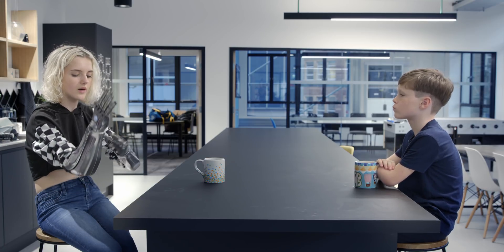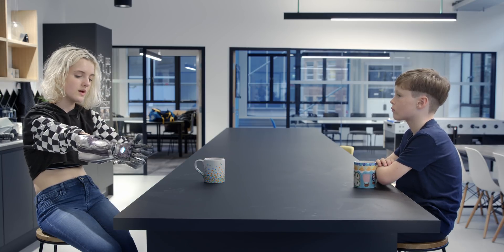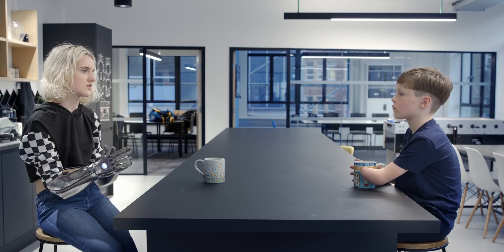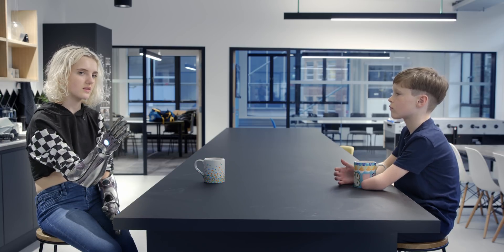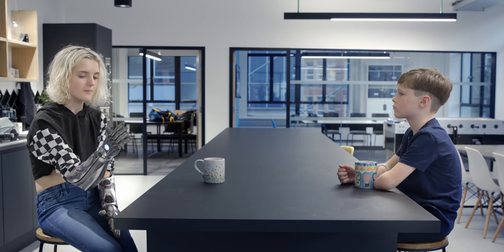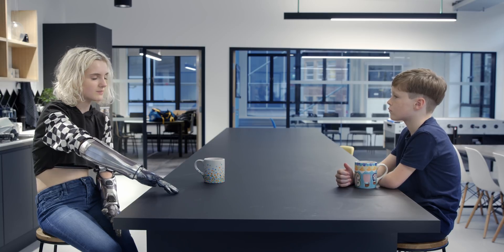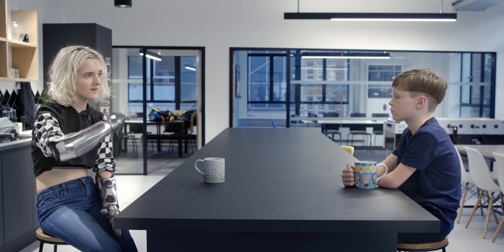When I first met up with Open Bionics, we went in the lab, put it on, and checked the sensitivity levels — which is probably what you'll do too. That looks at your muscles, how strong you are, and how sensitive they should make the hand so it's easiest and most comfortable, but not too sensitive. Once we sorted all that out, they had a bunch of different objects for me to try out and chuck around. It didn't take me very long — about 10 minutes later I was chucking things around. It's really easy to learn and I think you'll get it pretty fast.